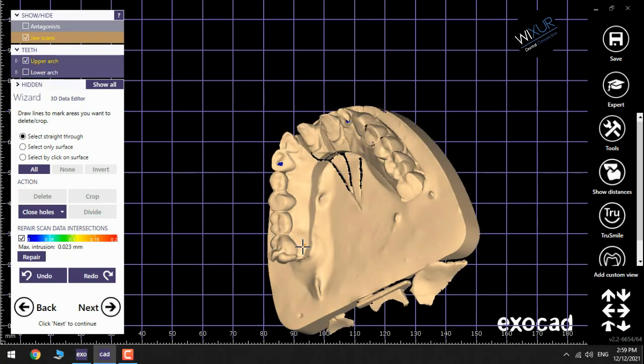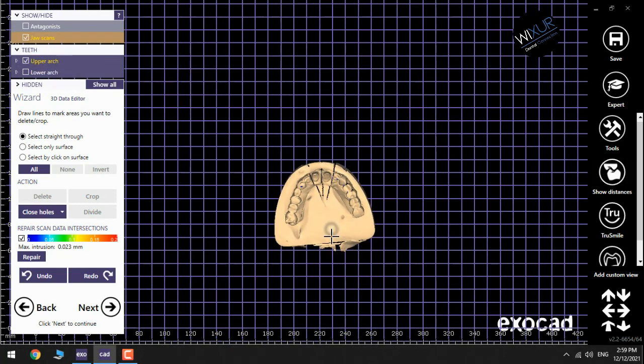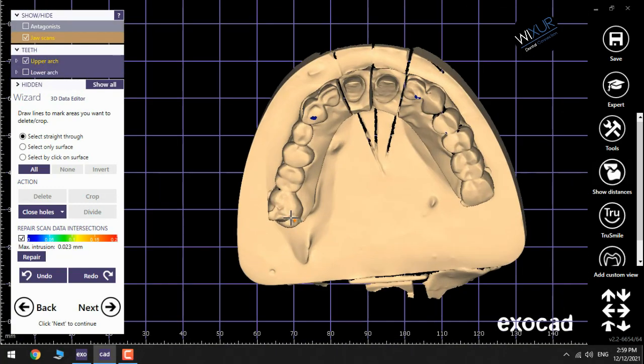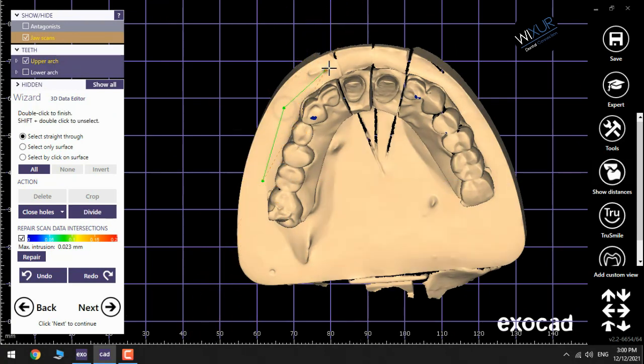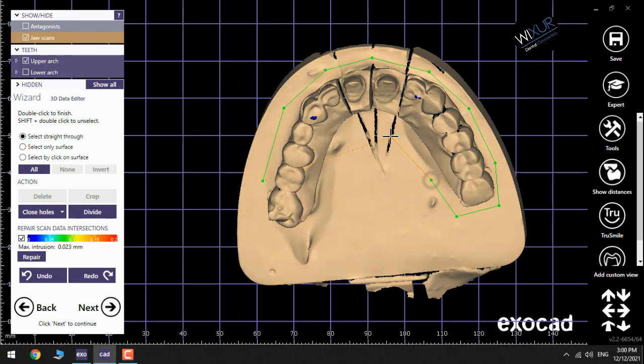Now it's time to crop the rest of the materials from the upper jaw and lower jaw. I start by the upper jaw. By mouse click, add more dots for the part of the model that you need to keep and actually crop the rest of the material.